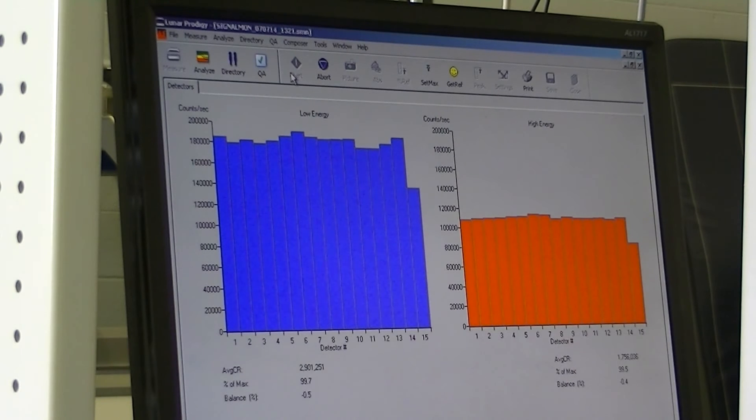So this x-ray, how it's jagged and crooked, needs to be adjusted. We want to get both these ends, detector one and fifteen, at the same height all the way to the top. So from here, we will adjust the x-ray.